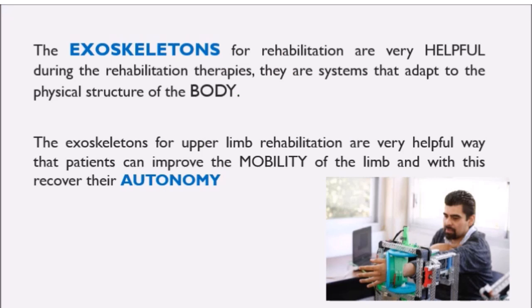Exoskeletons are a biomechanical system that adapt to the structure of the body and by mechanisms that perform the anatomical movements.